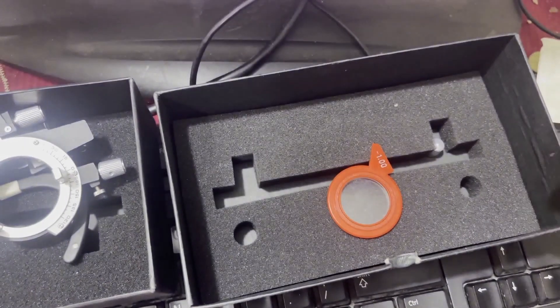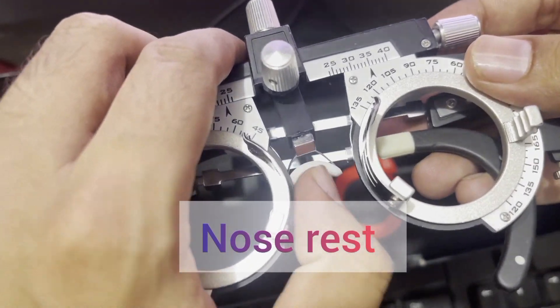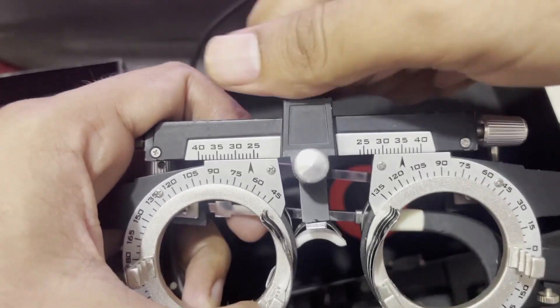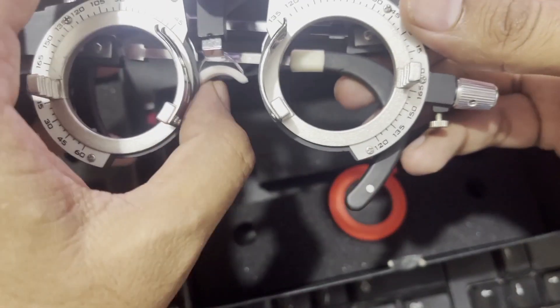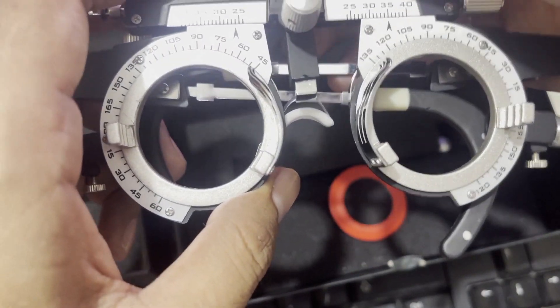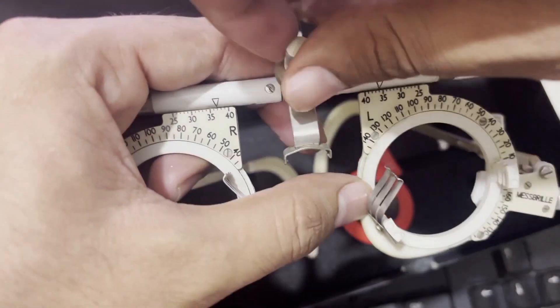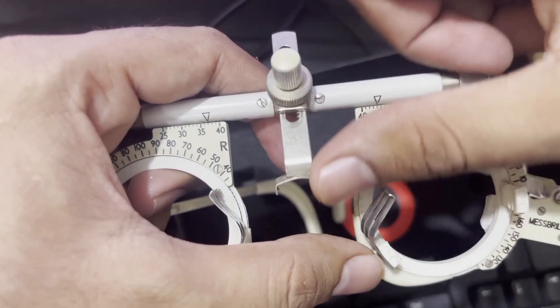This is the nose rest, and with the help of the knob at the top we can adjust the nose pad — also called the nose bridge — of the trial frame. By simply rotating this knob, we can move the nose rest to better fit the patient.